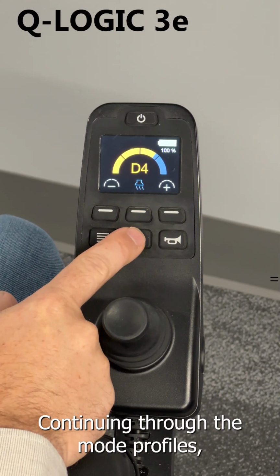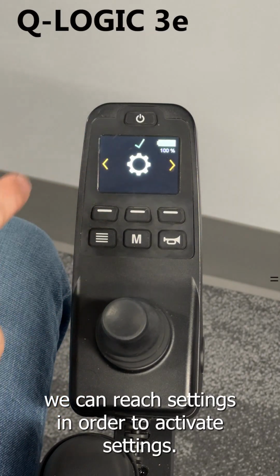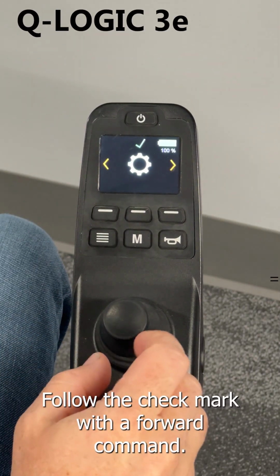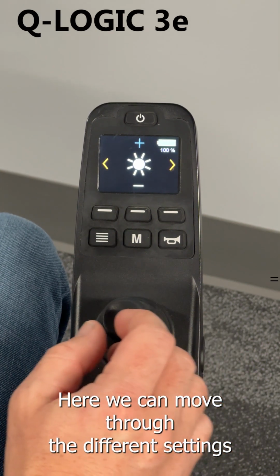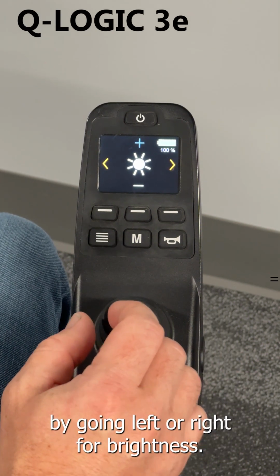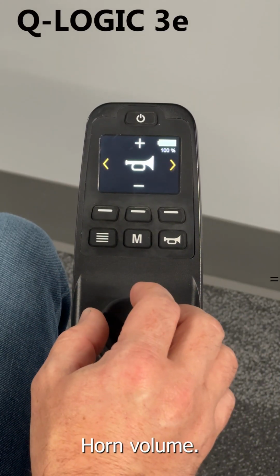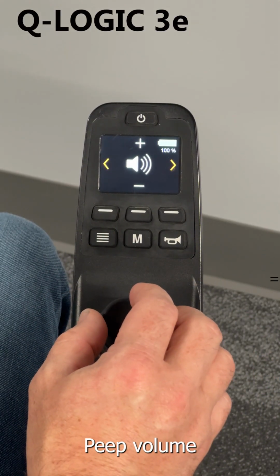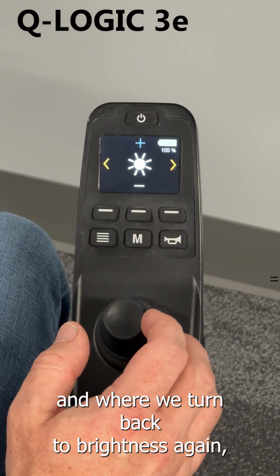Continuing through the mode profiles, we can reach settings. In order to activate settings, follow the check mark with a forward command. Here we can move through the different settings by going left or right for brightness, horn volume, beep volume, and we'll return back to brightness again.